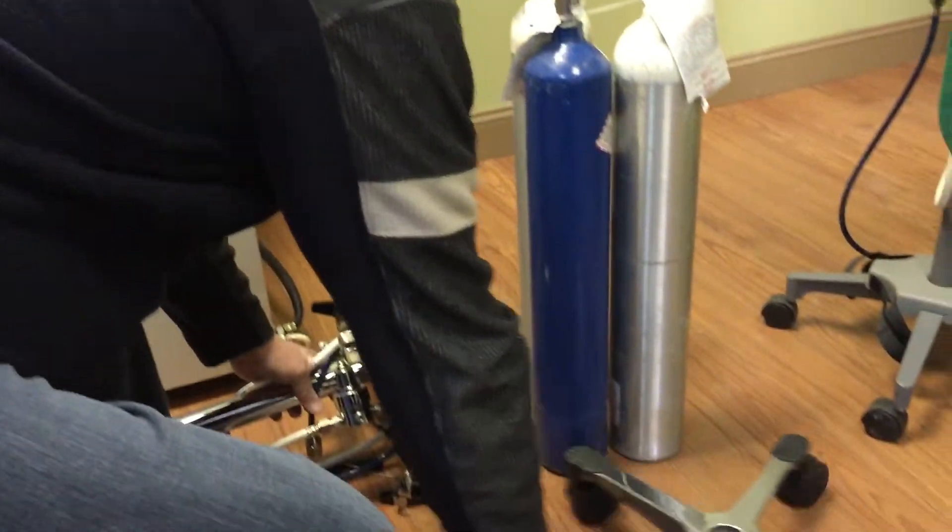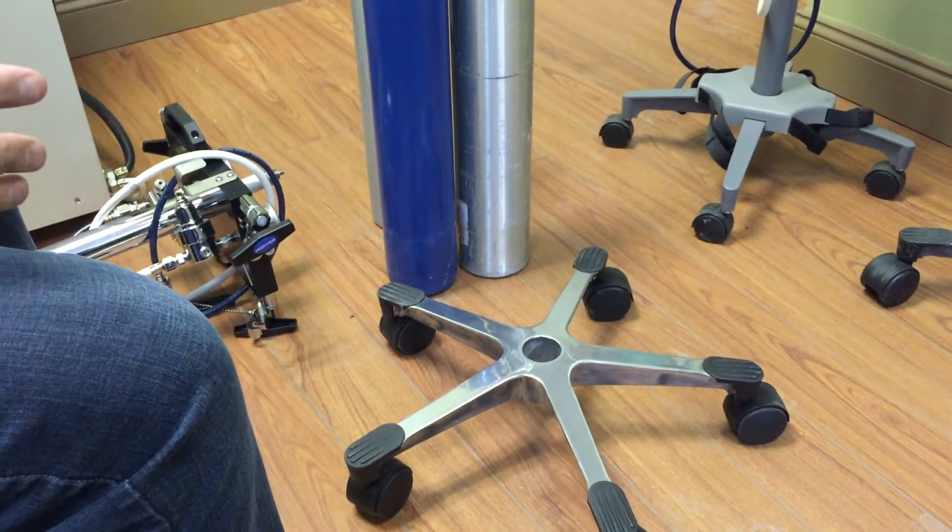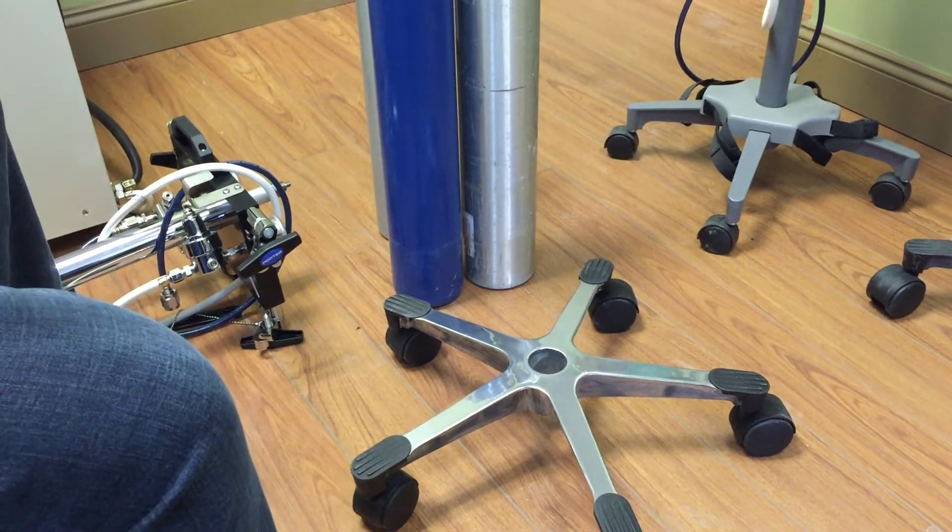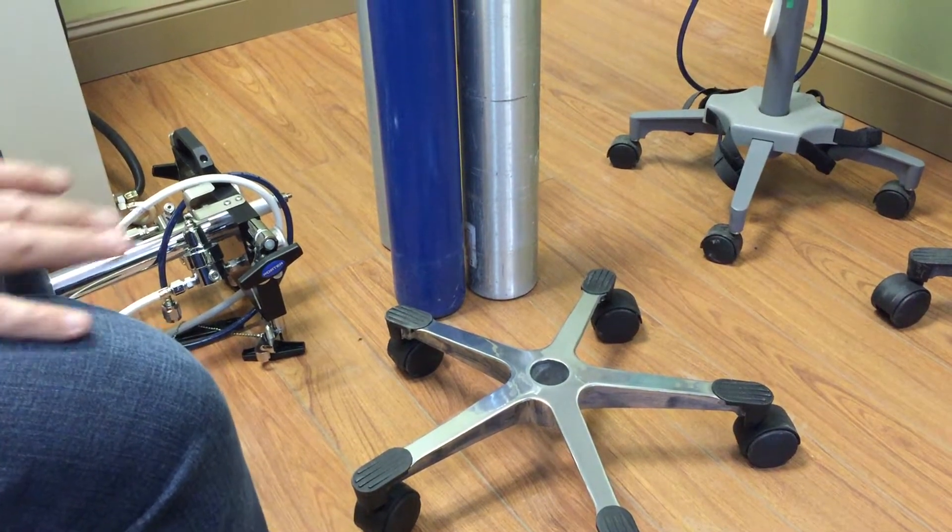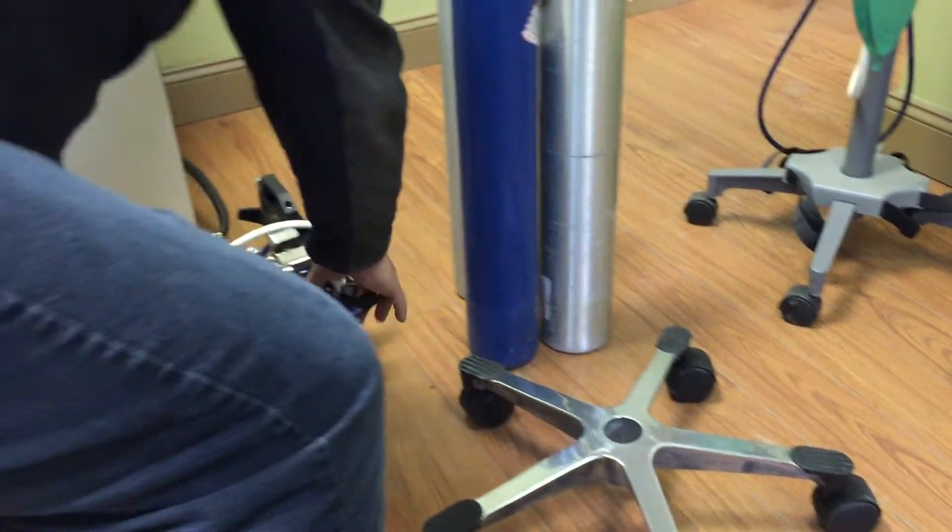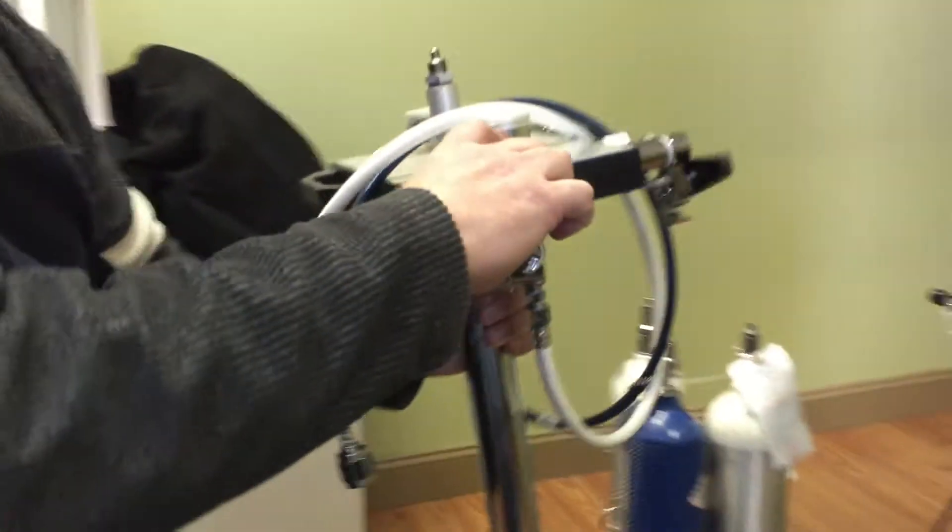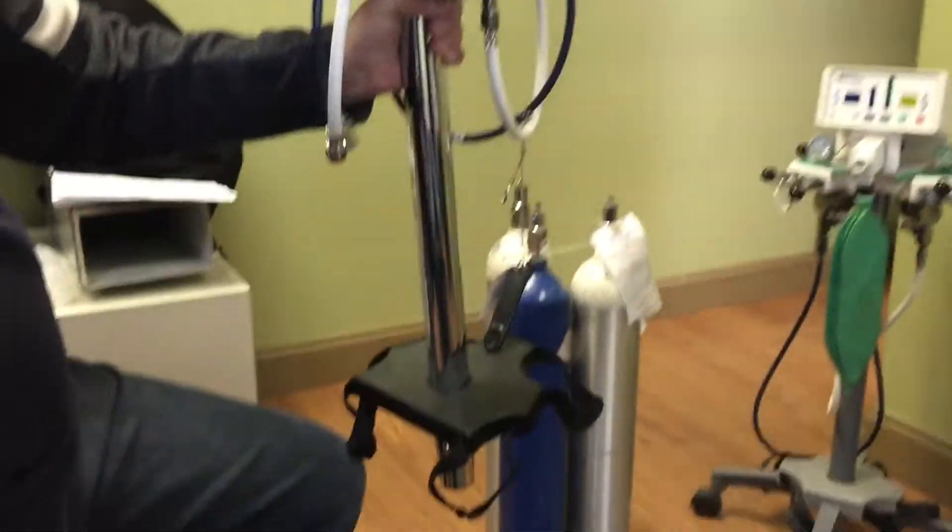We have our five-legged stand. What's important when we're assembling the five-legged stand is that we line up the bottles to the base of the stand. Now when it's shipped to you, you have this separate and this is all manufactured as one piece.